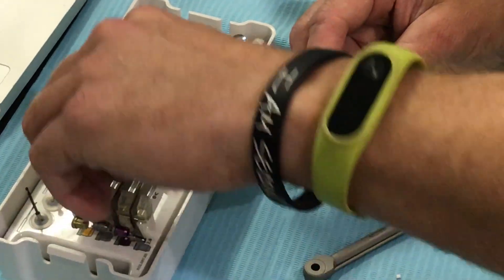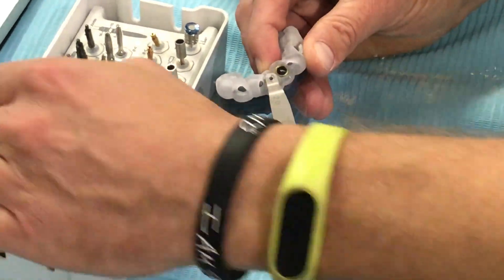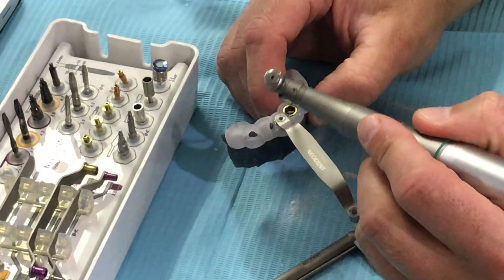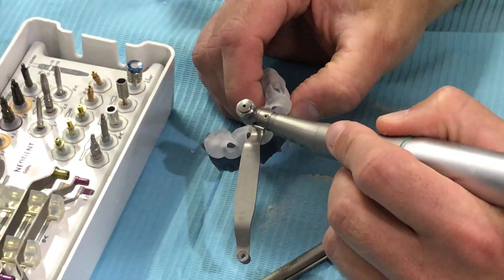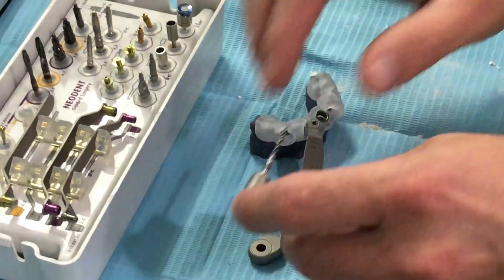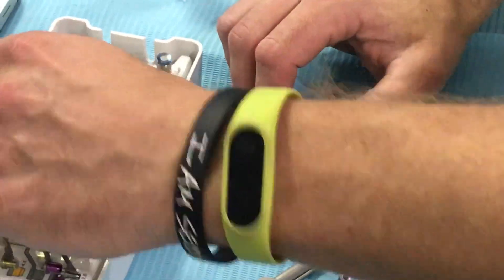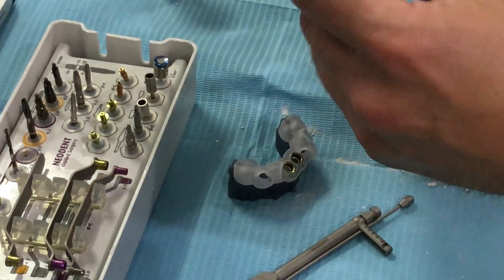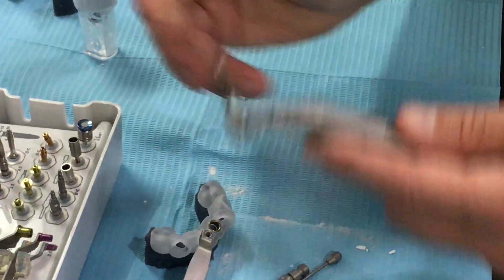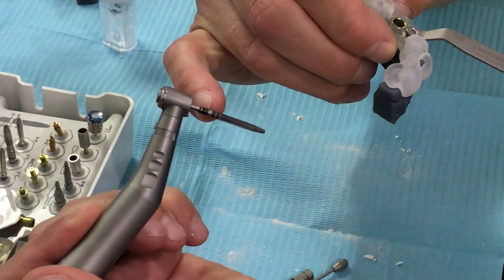I'm just quickly going to walk through the steps. We would start with our spoons — taking out the spoon for the regular sleeve in a 2.0, making sure that sleeve is all the way down, and then it would have my two millimeter twist on a handpiece. At 800 RPMs I want to go down through here until I see the top of the silver bar. We're placing a 4.3 by 13 length drive implant — doesn't matter if it's CM or GM — but I have to have the correct implant driver; they have the same drilling sequence. Once I'm done my two millimeter twist, I simply switch the spoon over to the purple or magenta side and place my 3.5 drill, still at 800 RPMs. I'm looking at the side of this drill for the top of the silver bar — that's 13 in length.